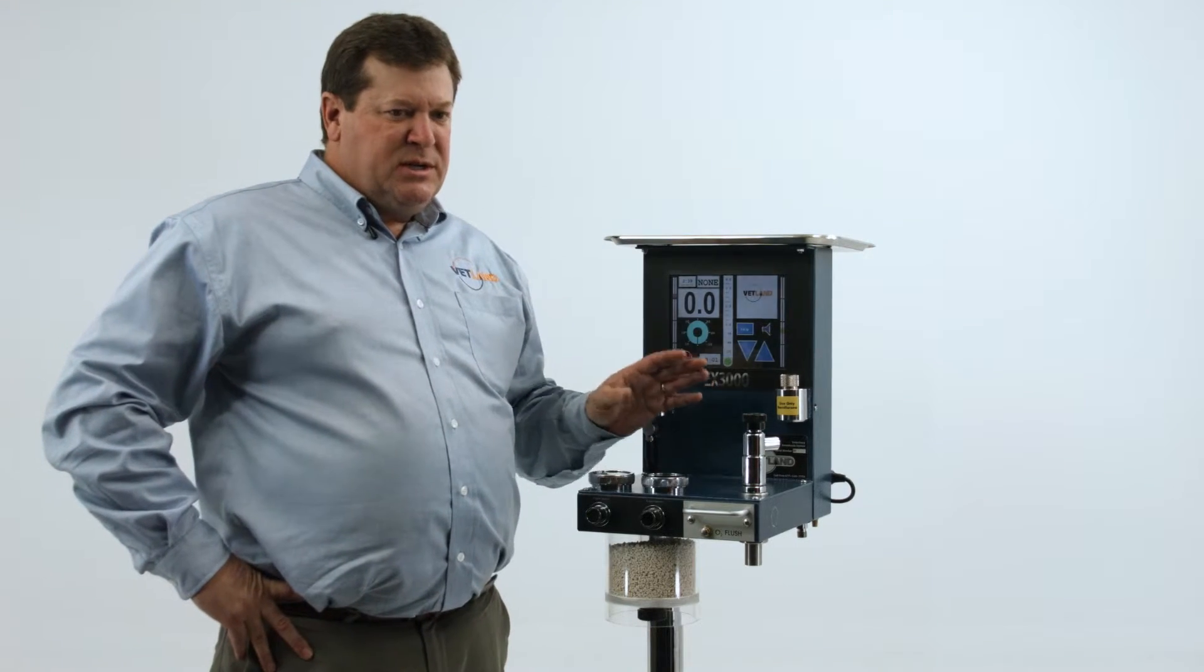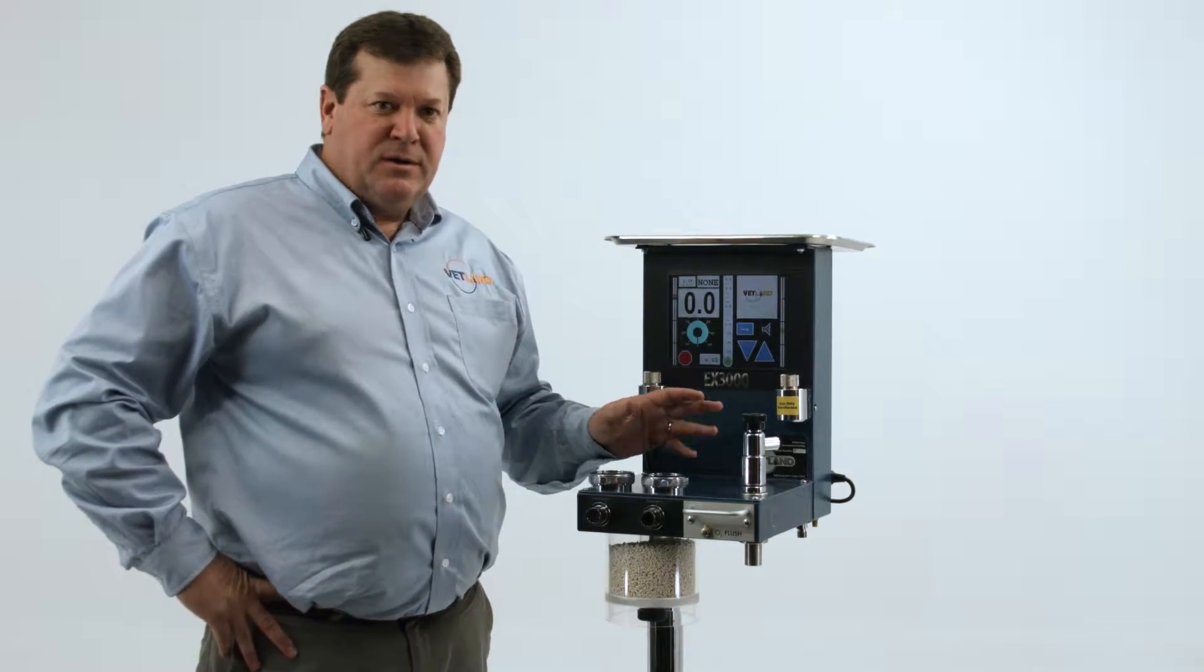It's a very popular machine. It's catching on more and more every year, and the main reason is because of the safety aspects. It's going to look over your shoulder and make sure that you don't make a mistake. And it gives you the ability to use isofluorane or sevofluorane in one system.